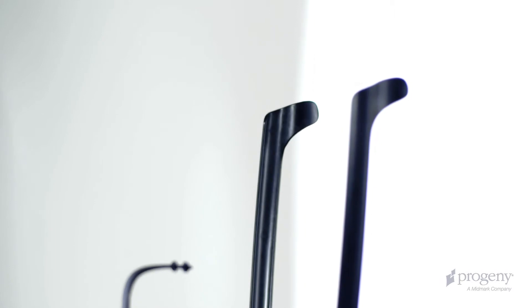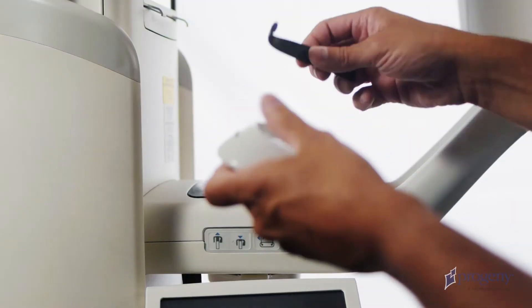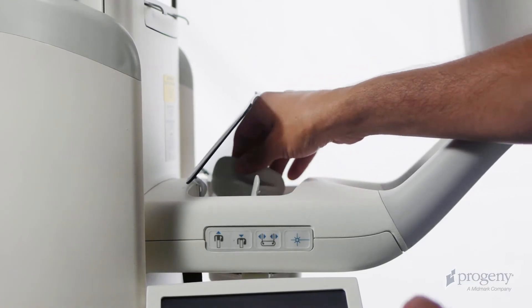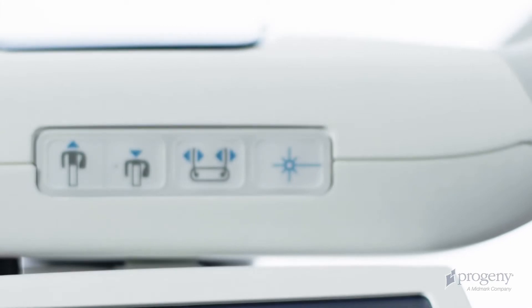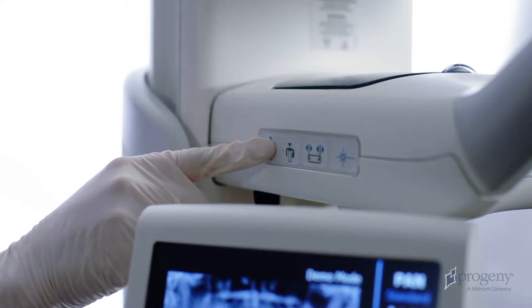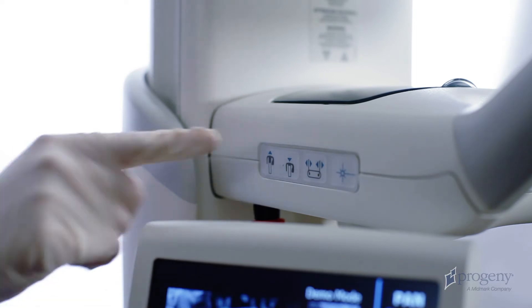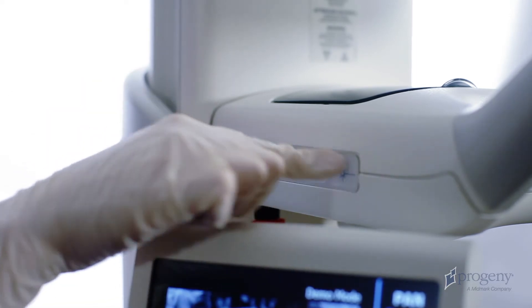The patient positioners and sanitary bite pieces are stored in a compartment on the positioning table. There are two different types of positioners: a bite piece and chin rest for panoramic exams, and a TMJ positioner. On both sides of the positioning table, we have the control keypad, column height adjustments, temple wands control, and the alignment lasers.